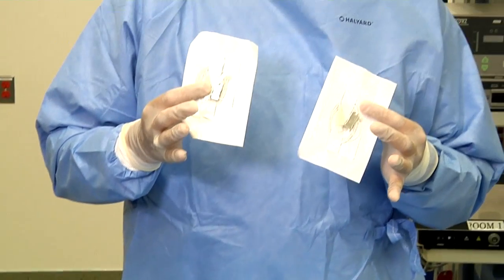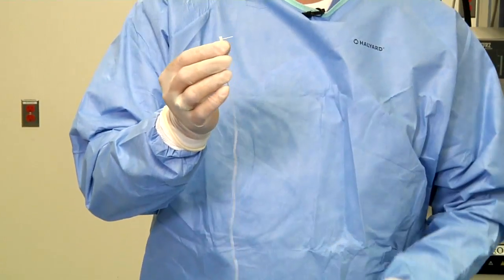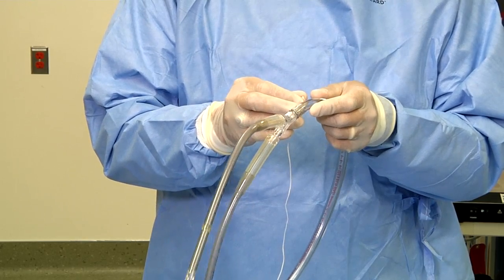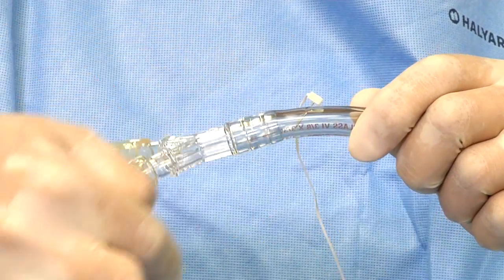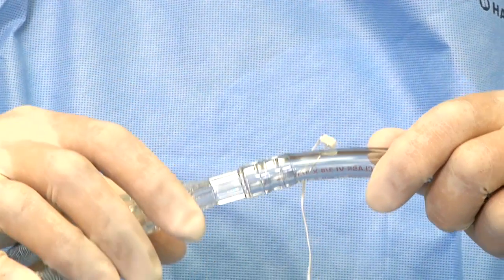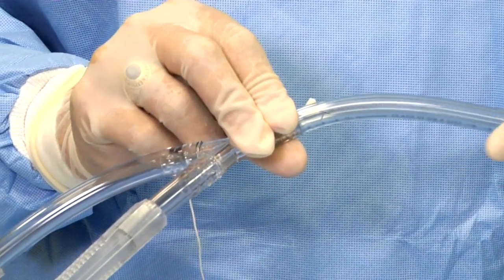Additionally, the two temperature sensors will be opened and placed per the clinician, either in the tubing or sometimes in the patient's sidewall, depending on clinician's preference. There is on the temperature sensors a 15 millimeter needle, so do be careful as it is sharp. Very commonly, the needle is placed on the inflow tubing into the Y tubing itself. The temperature sensor is placed at an angle into the tubing in the direction of flow — the inflow flows in the direction of the red arrows, and the temperature probe is angled in that same direction. The second temperature probe is placed again at an angle in the outflow tubing, in the direction of flow as marked by the arrows on the Y tubing.